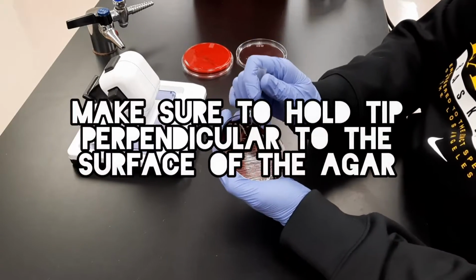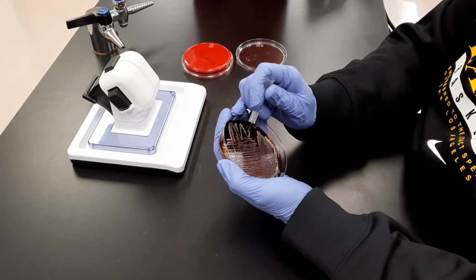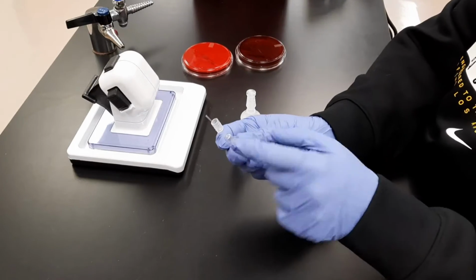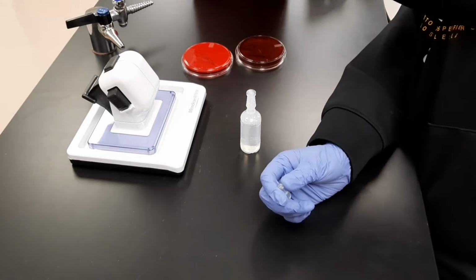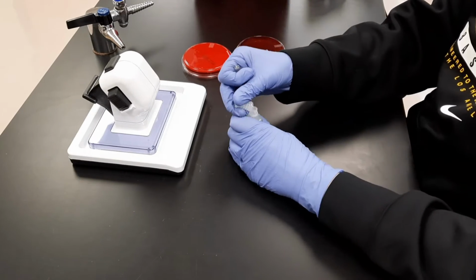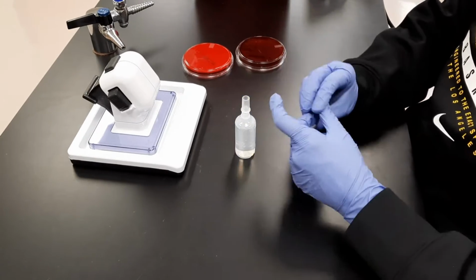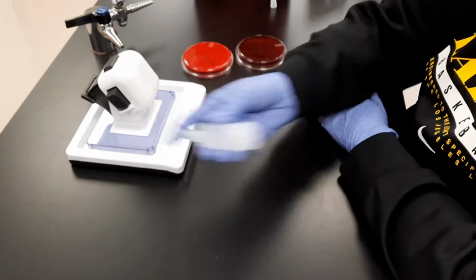Take your tip and touch 1, 2, 3 times. And take that piece and pull straight up, and that can be discarded. Open up your water, place tip down, and secure on tightly, and shake vigorously to ensure proper mixing.